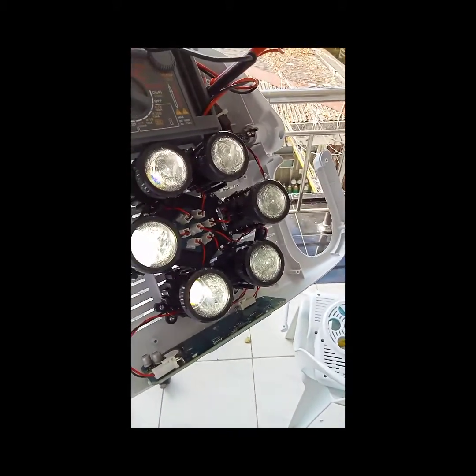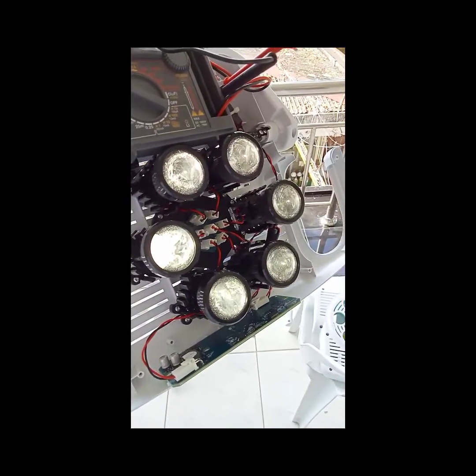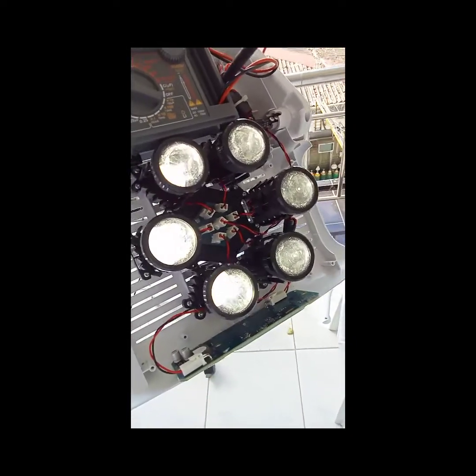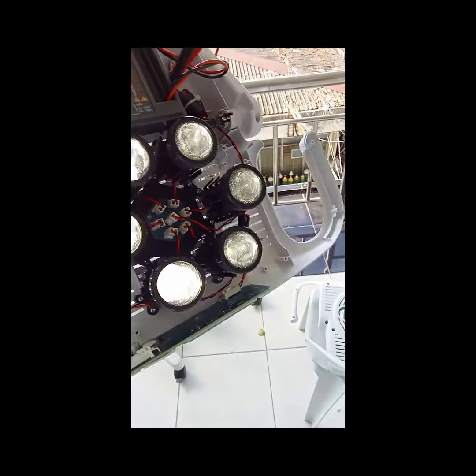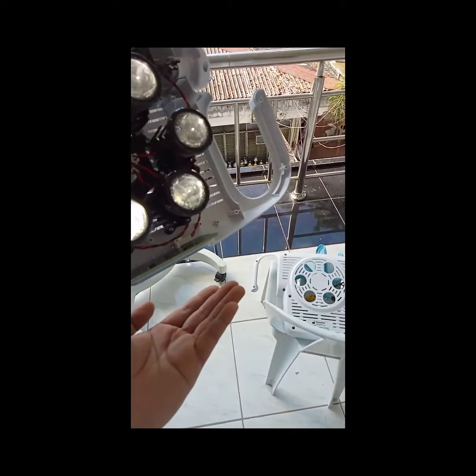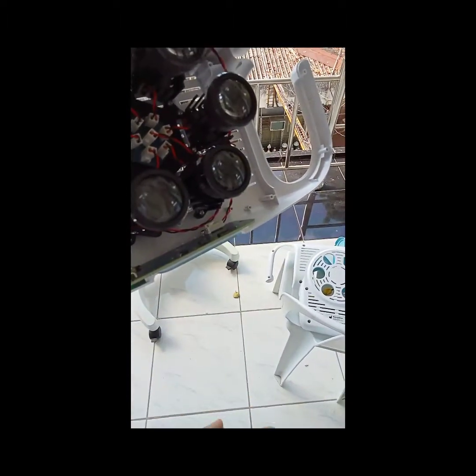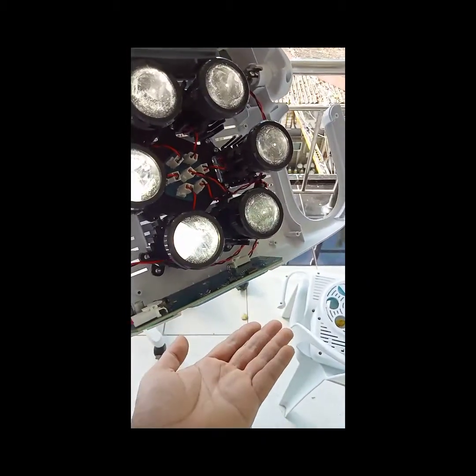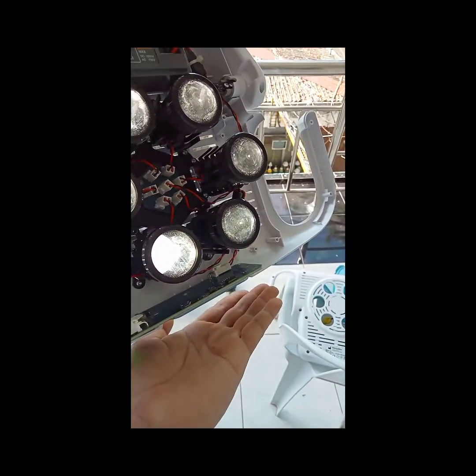This is an LED type. We have six LED spots here. Actually, if we're going to get our hands close to the sensor, it will turn off. And we're going to take a look at the sensor side.